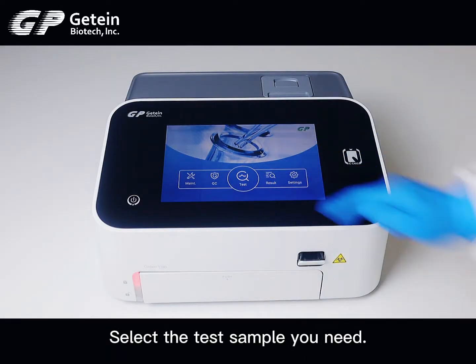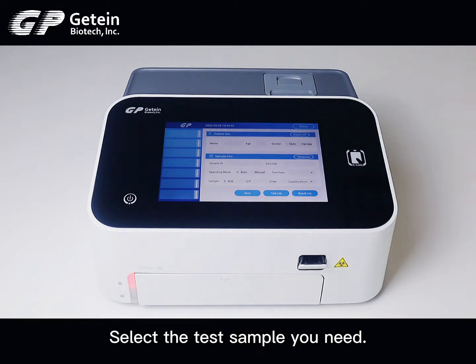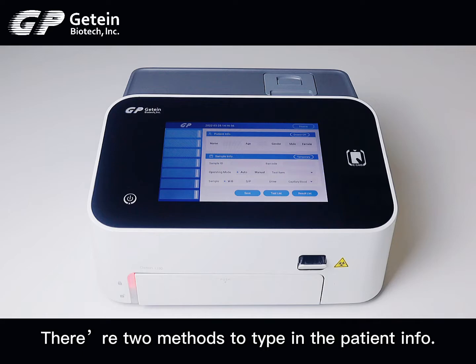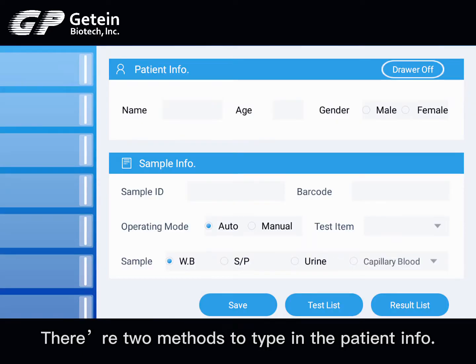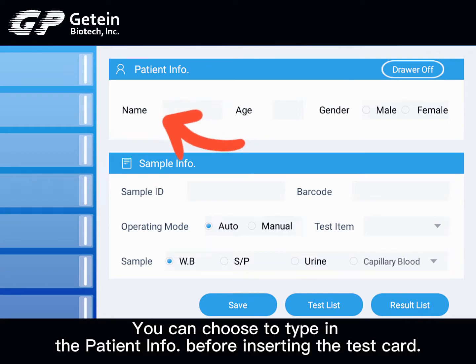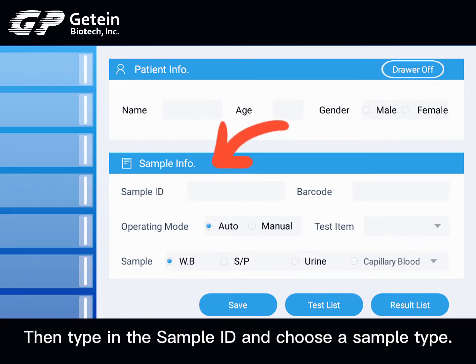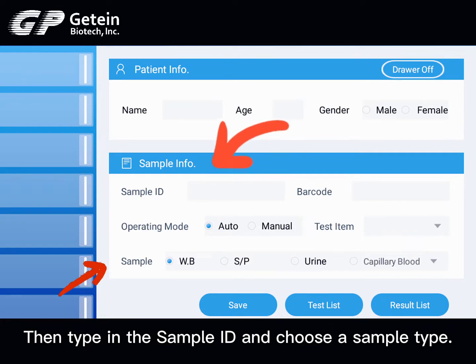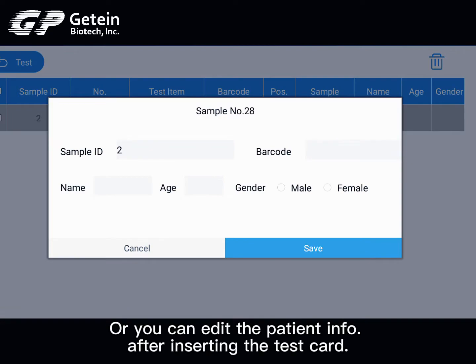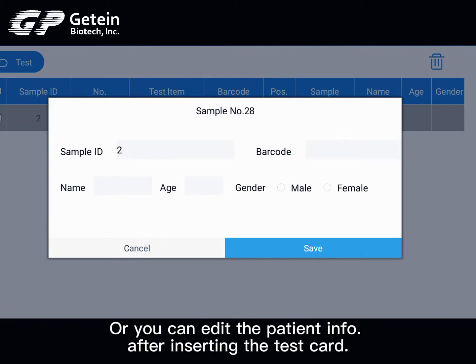Select the test sample you need. There are two methods to enter the patient information. You can choose to type in the patient info before inserting the test card, then type in the sample ID and choose a sample type. Or you can edit the patient information after inserting the test card.